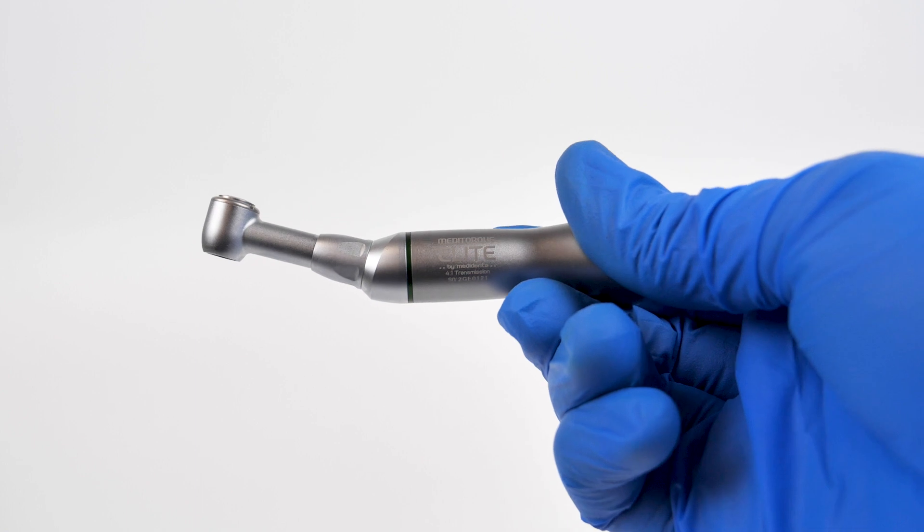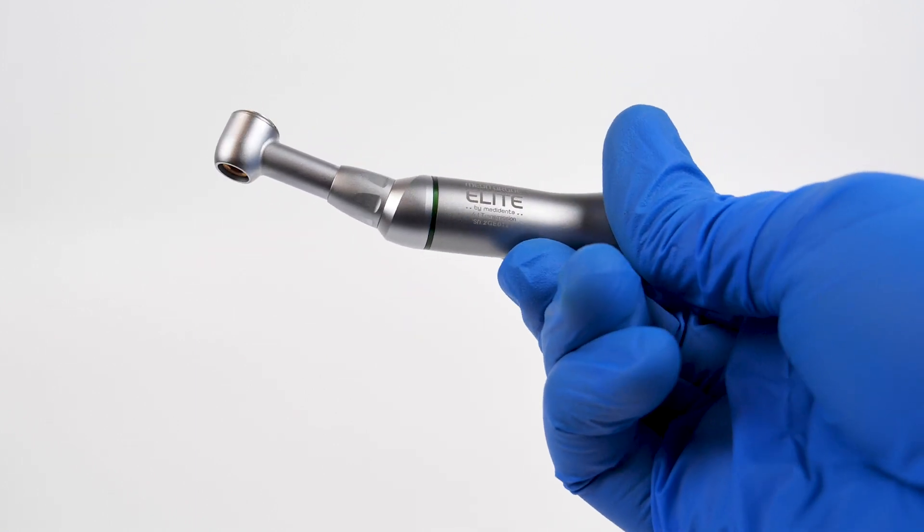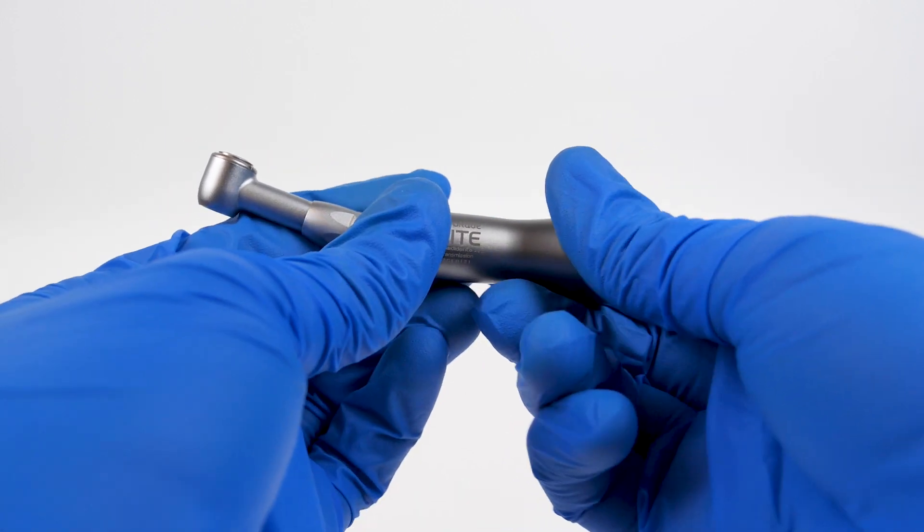Compatible with all ISO certified hand files and equipped with a 4-to-1 gear reduction, this attachment relieves the stress of hand instrumentation.